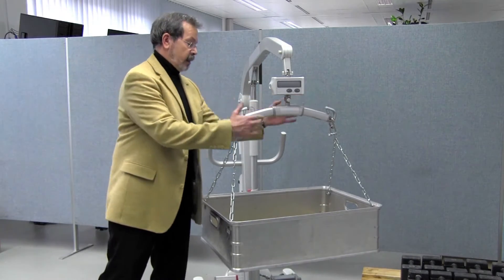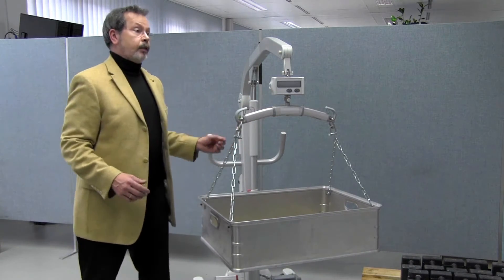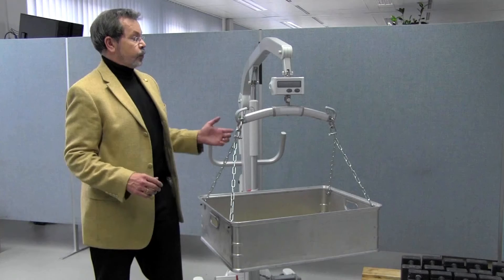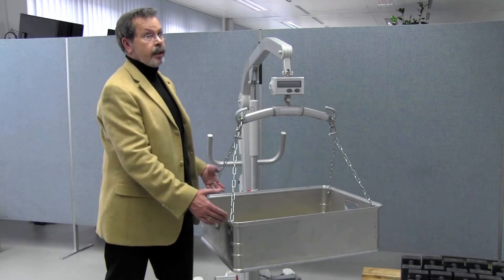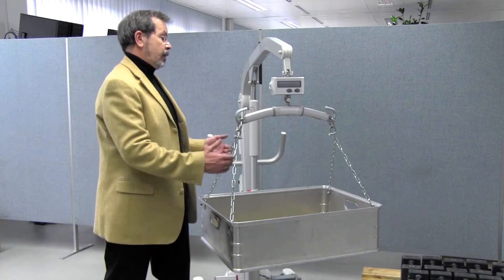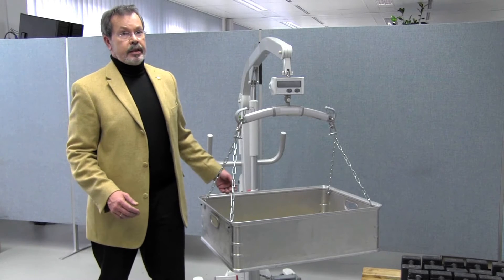Normally a sitting sling would be mounted on this lifter to hold the patient. Now for purposes of calibration, I have replaced the sitting sling with a sturdy box where I will place weights later.